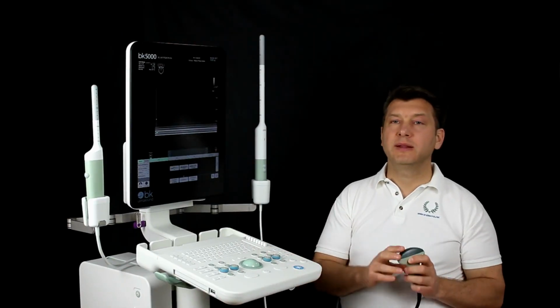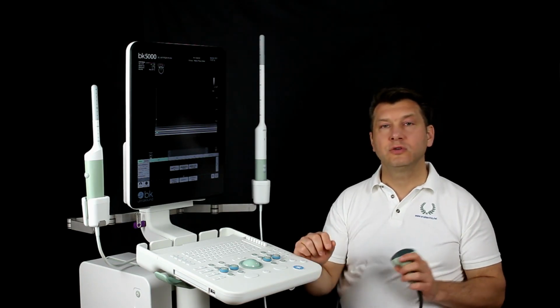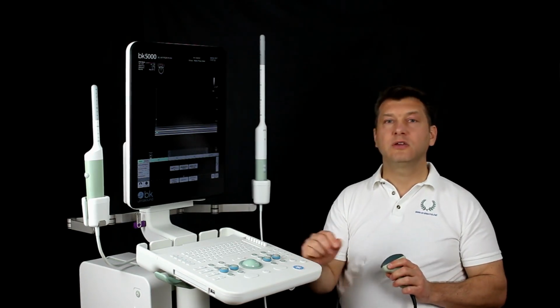The better you understand these settings, the faster and more independent your pelvic floor diagnostic can be. I wish you every success and thank you for your attention.